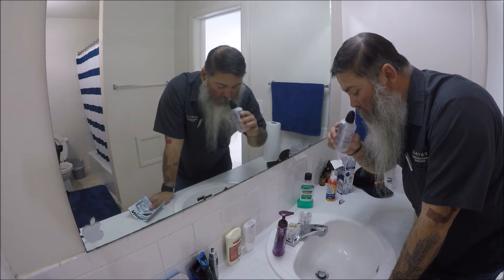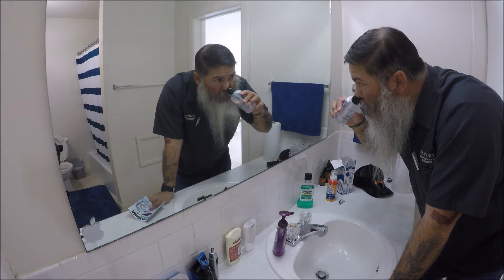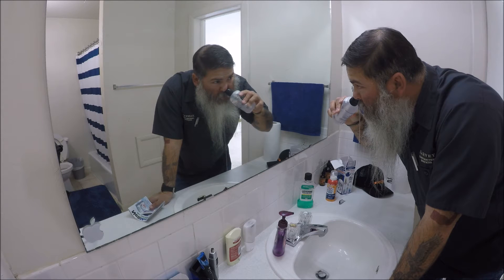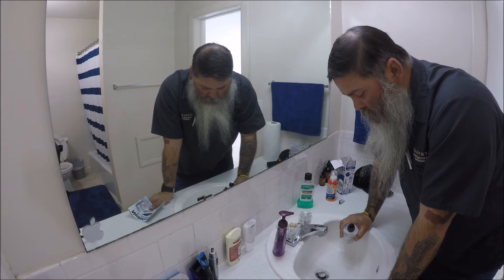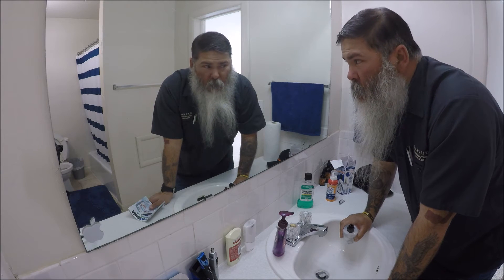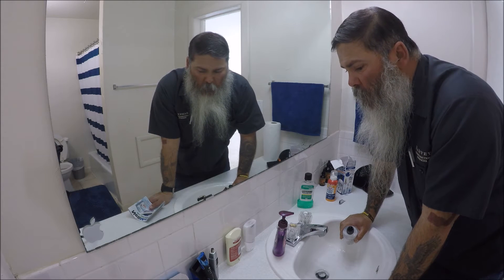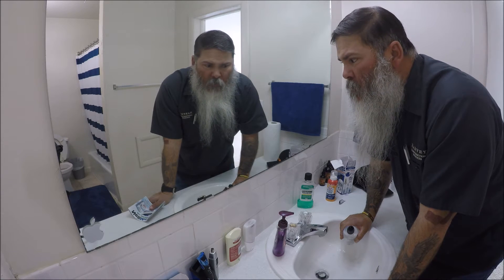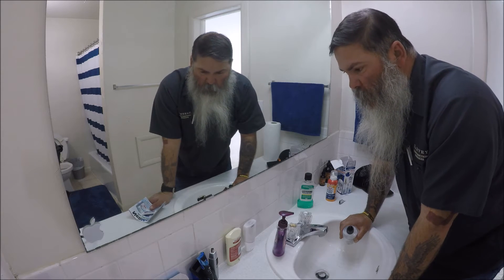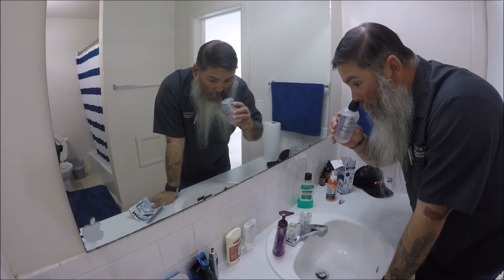This is what I'm going to do — here we go. That's one side. It says you got to make the K sound, or make the K motion with your mouth, so you close off your airway so it goes from one nostril to the other. Alright, here we go again.